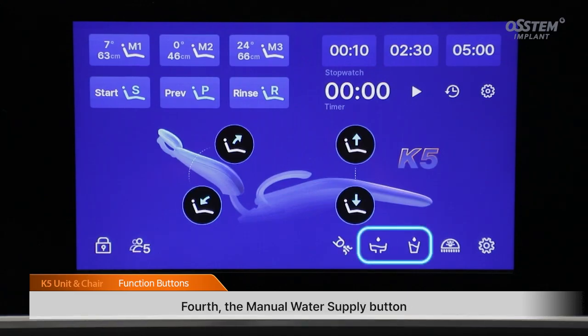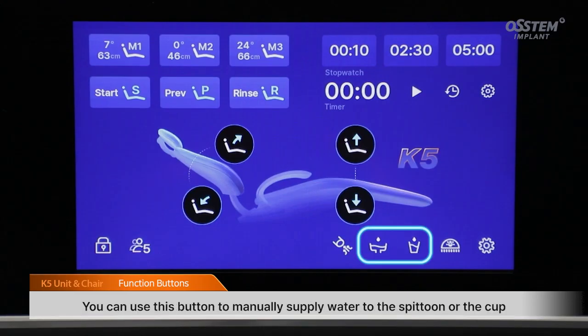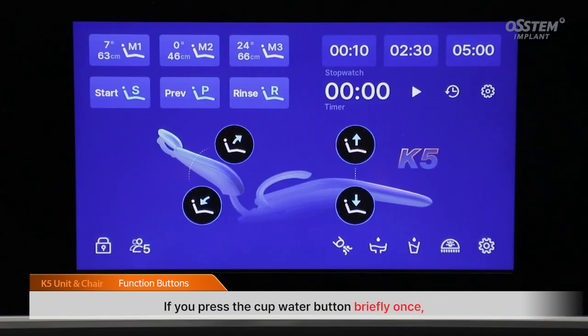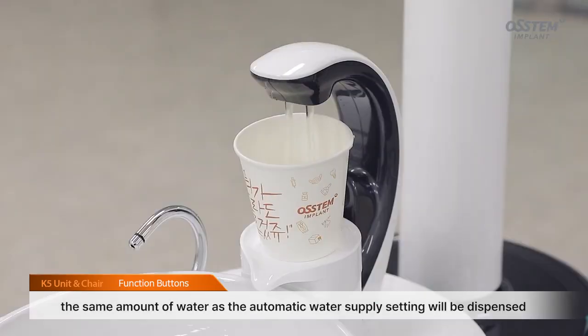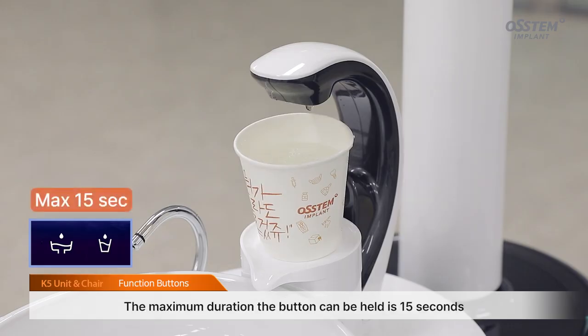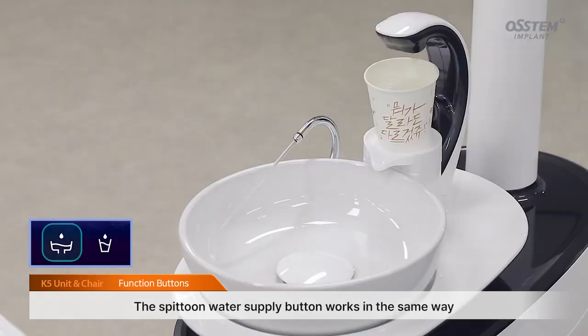Fourth, the manual water supply button. You can use this button to manually supply water to the spittoon or the cup. If you press the cup water button briefly once, the same amount of water as the automatic water supply setting will be dispensed. If you press and hold the button for more than 1 second, water will flow only while the button is pressed. The maximum duration the button can be held is 15 seconds. The spittoon water supply button works in the same way.